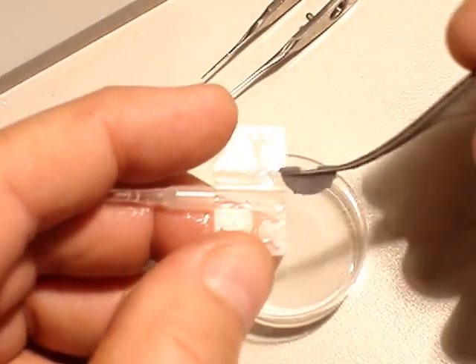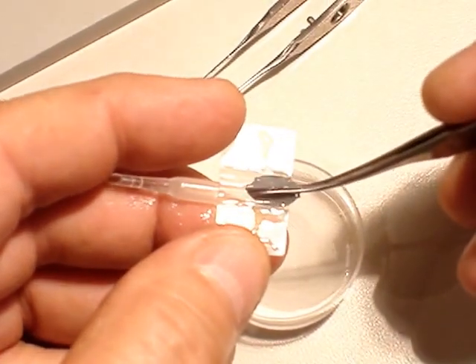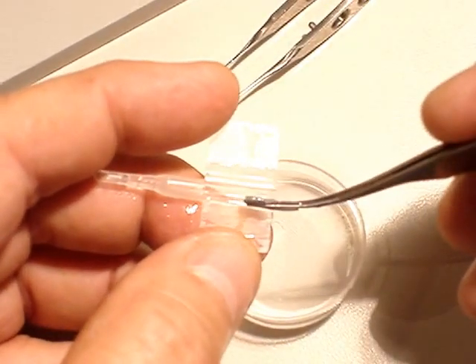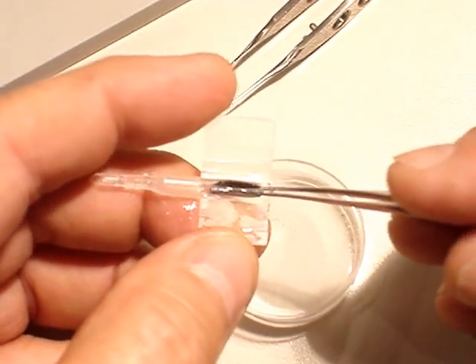Then you split here. You split the two sides of the implant. You can split here at the border. Then you go into the middle.